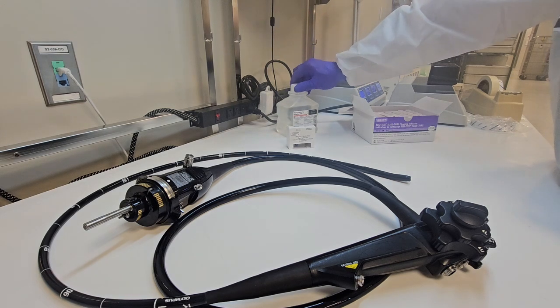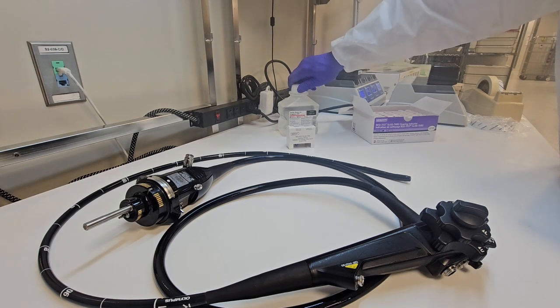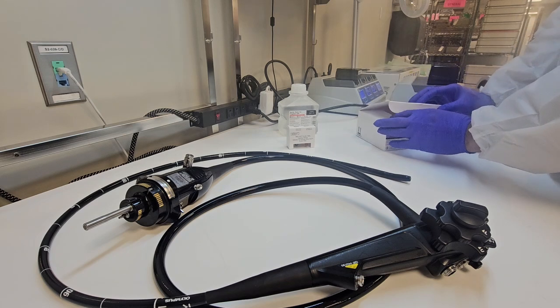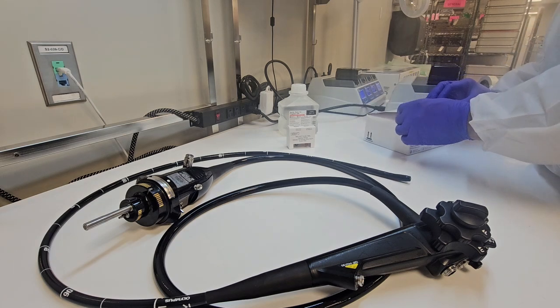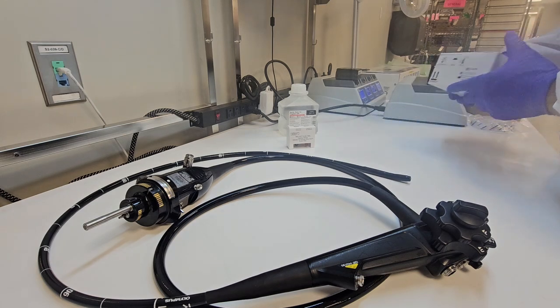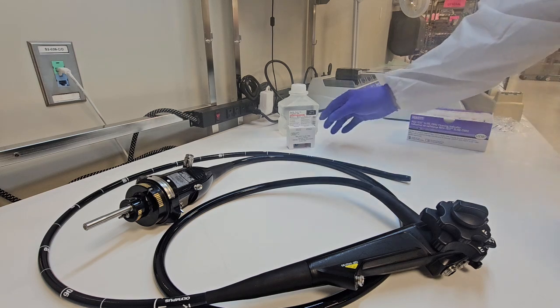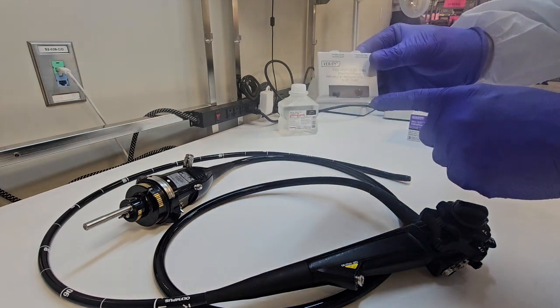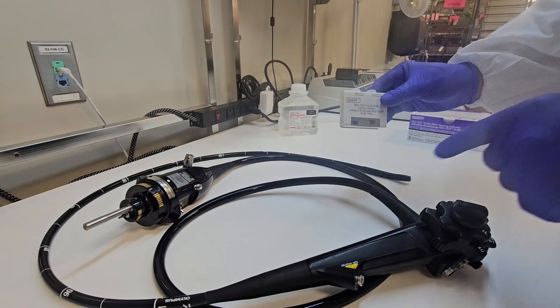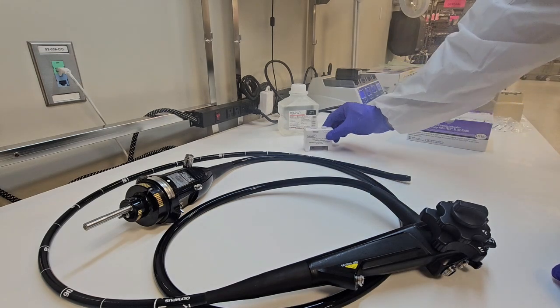I know some of you guys are going to catch that like, hey wait a minute, what if that was a positive? But if there was soil in there, you dip that squeegee in there, there was water in there, you just dumped it and you're putting it back on that water. What are you going to do with that water? But hey, I got you guys. That was a bad practice and should not be done. This is for educational purposes only. So I'm educating you some more.